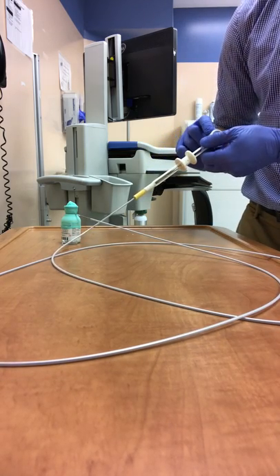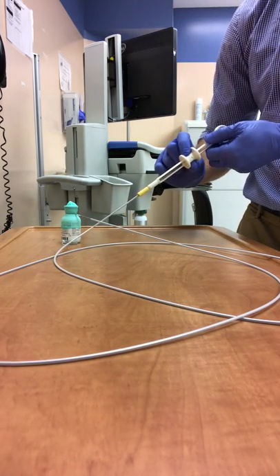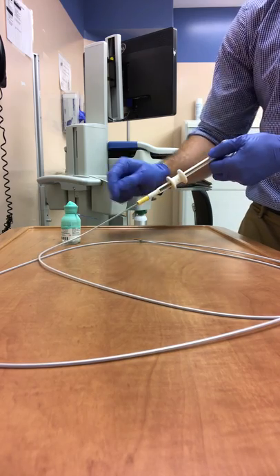You then switch to two-hand technique, holding one hand on the thumb ring, one hand on the spool, and then aggressively push it away from the spool in order to deploy.